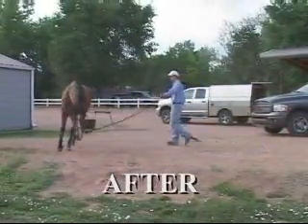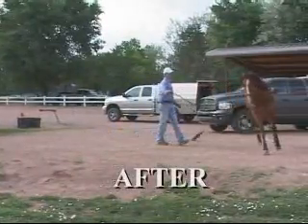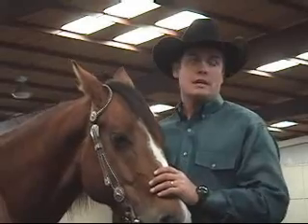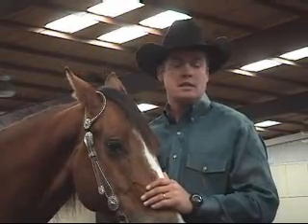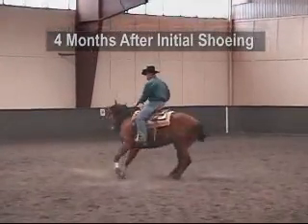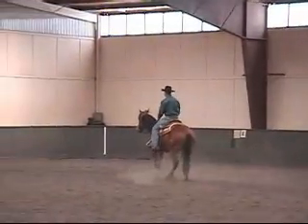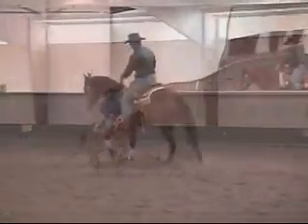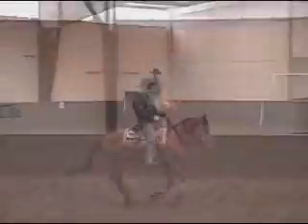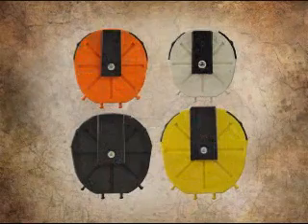It's funny — these horses can't talk to us, unfortunately. When we first saw him, he didn't turn around very good, and he acted like he wore lead shoes. He wasn't lame at all at that time, that first week or two. But he just did not want to turn around. He came back after having his shoes put on 100% sound, but his turnaround just miraculously got better. I think he was a little sore, but not so sore we could tell when I first started him. His performance improved. And I think the missing link is just the fact that we've never been able to ask the horse in a way that we can now. I think it's opening new ground into the treatment protocol, but without the leverage testing tool, you would never be able to get an appreciation for what's possible. We've just begun to scratch the surface on what's possible.